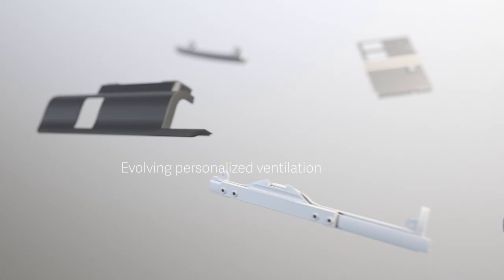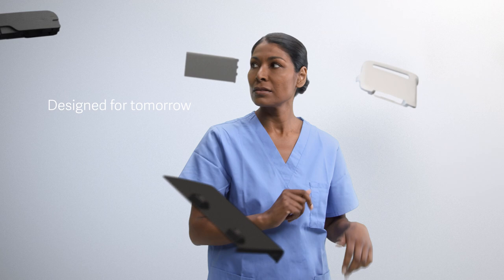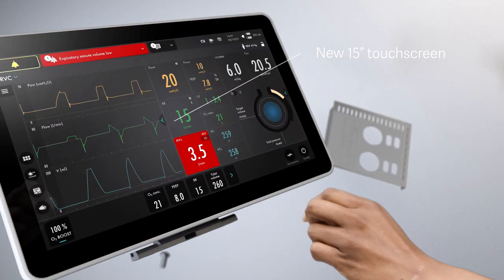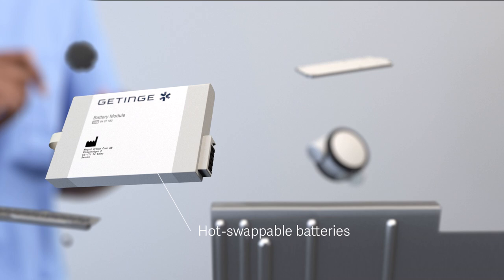With Servo-C, we are combining the best parts and tools to enable personalized treatments and support tomorrow's clinical needs.